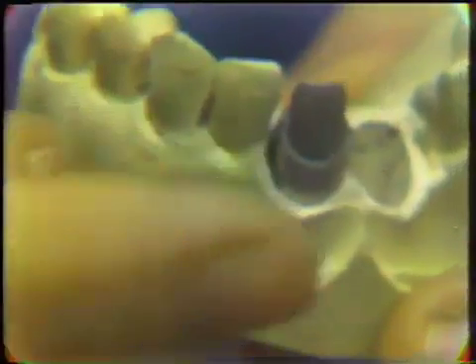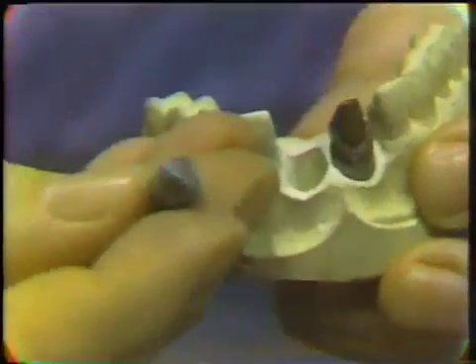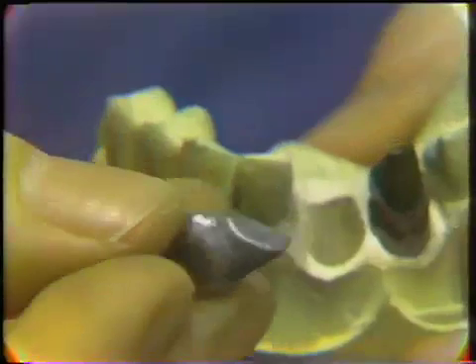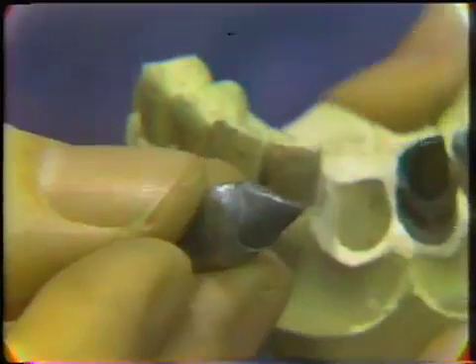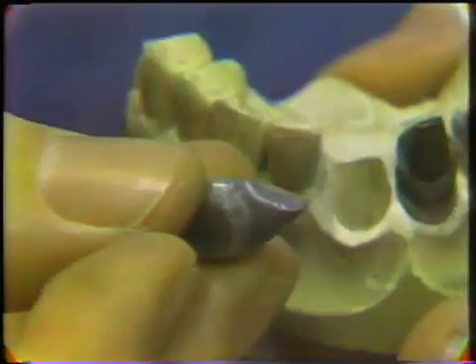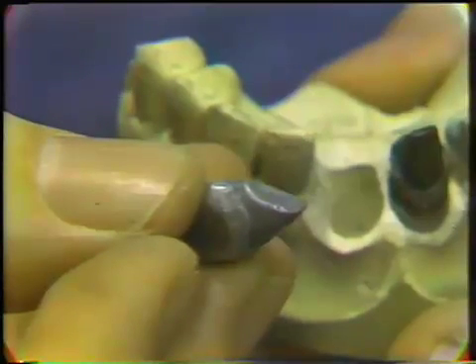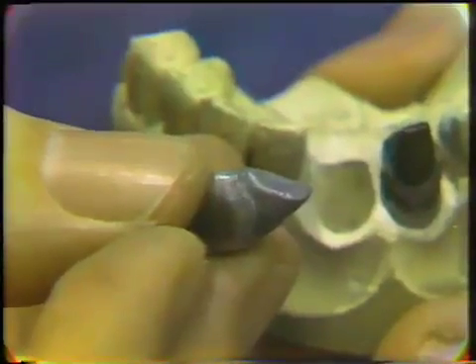This copper die with a low-fusing metal base simply fits into a regular stone model. Next to it we have an amalgam die. This is not quite the same amalgam used as a restoration in a tooth — it's a much coarser type. The difficulty with this material is that it must be vibrated and condensed into the mold, which restricts its use again to a rigid impression material such as dental compound, and rules out the possibility of using mercaptan or silicone rubber impression materials.